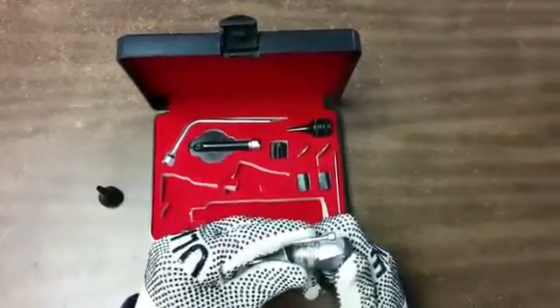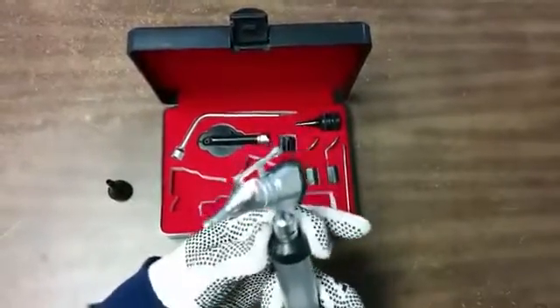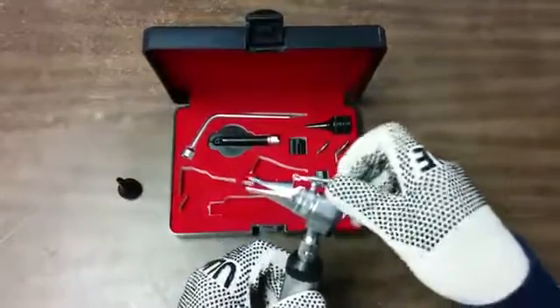Take it off. Take this one here and just align it to the pin, then turn it slightly. Now turn on the power again and see the light from here. You can use this part to open and close.